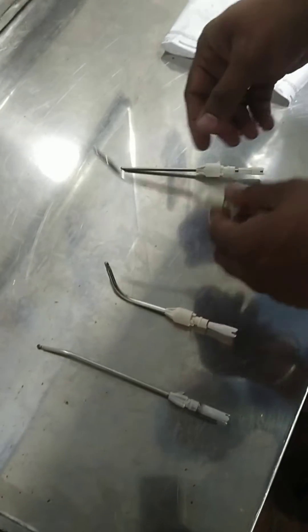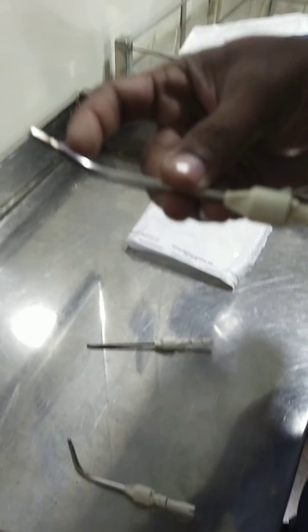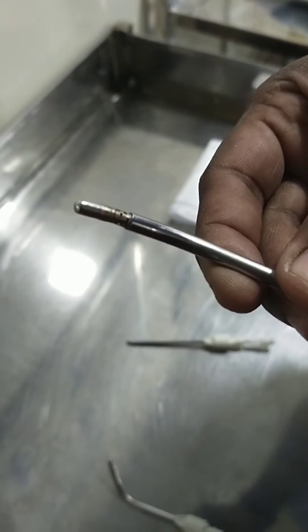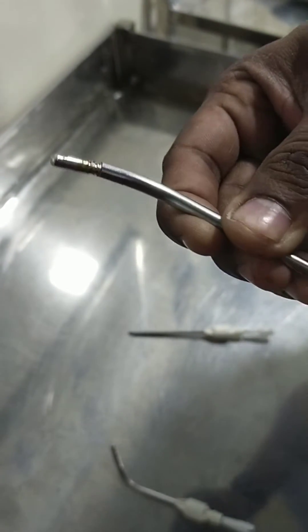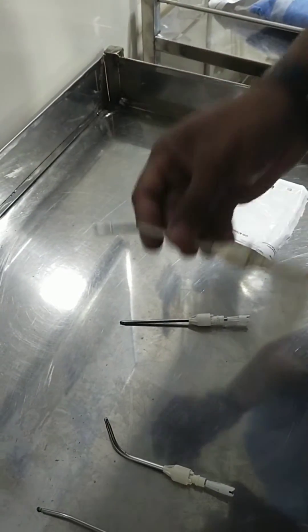Second thing — this is a curved blade. You can see it is rotating but strings have come out. When you look closely you can see all the strings are came out. When you rotate now, the tip will get wobbled. Don't use this blade.